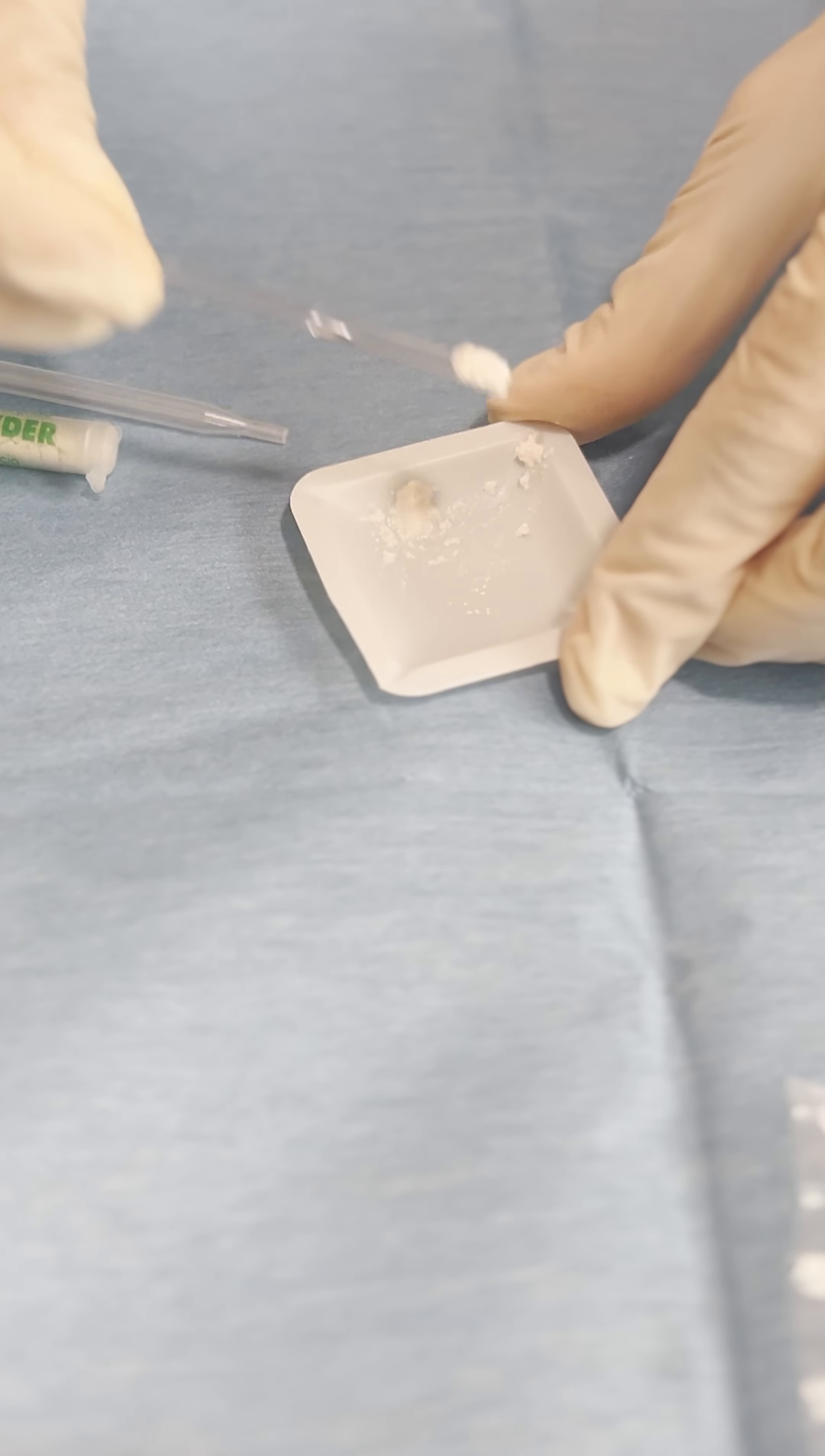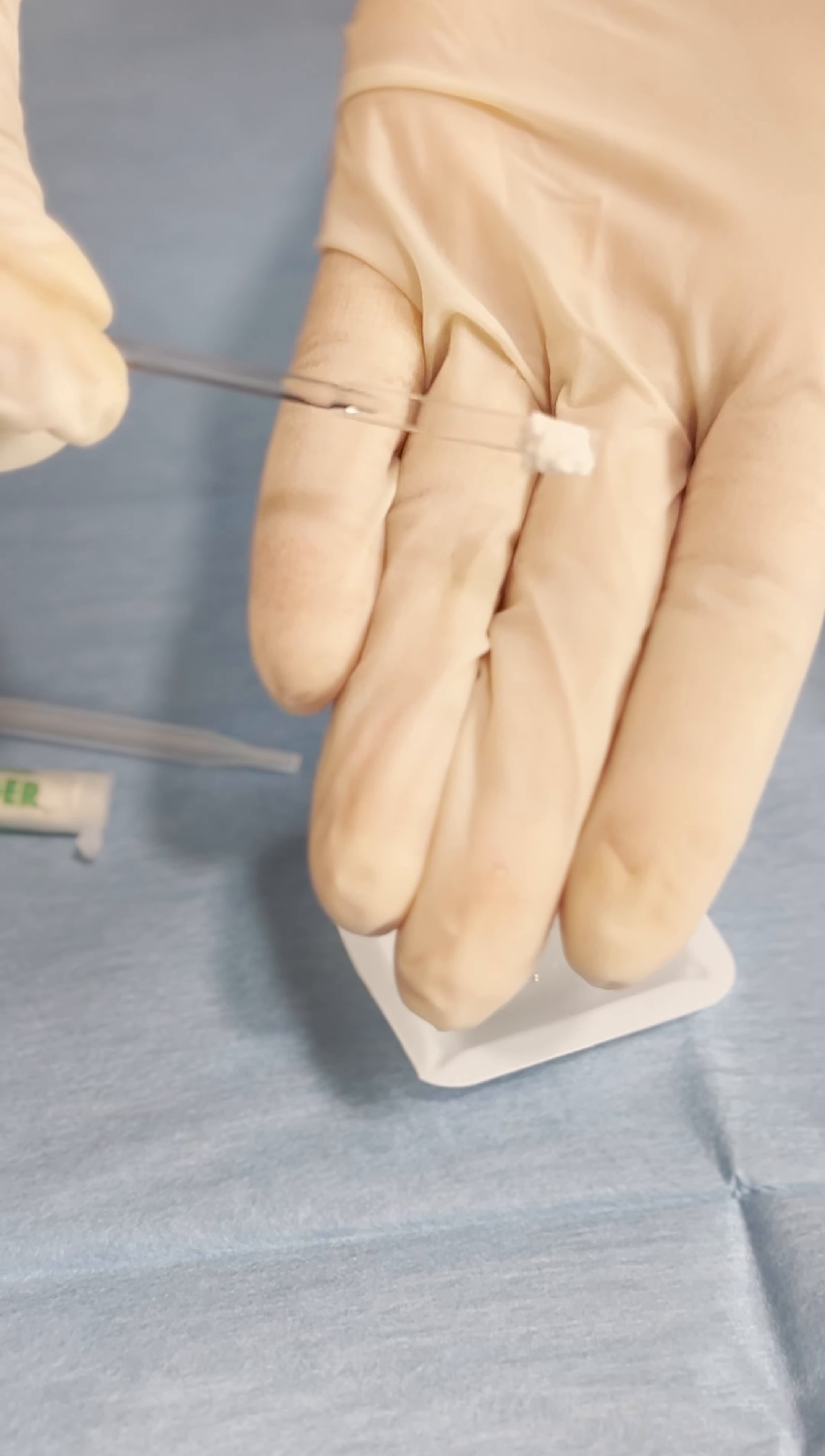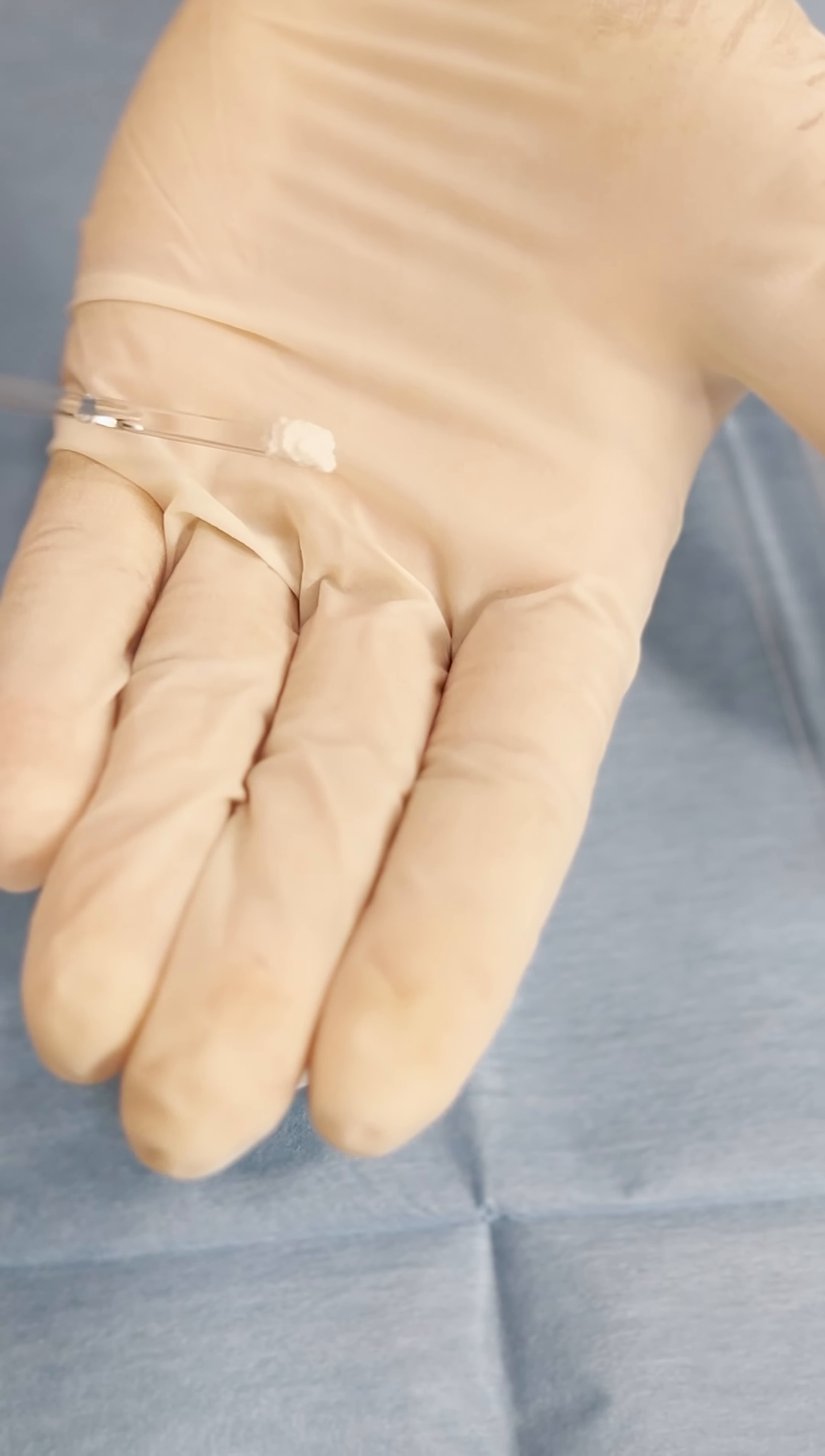Okay let's take it off and this is how it is. You can see that it doesn't move but remember to put your hand beneath it so you can move around without wasting any biomaterial.